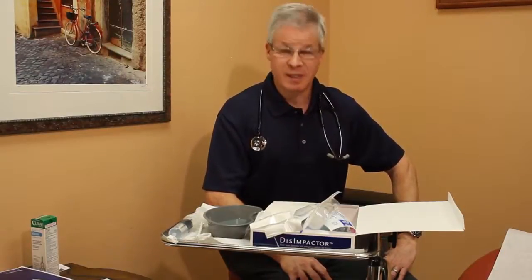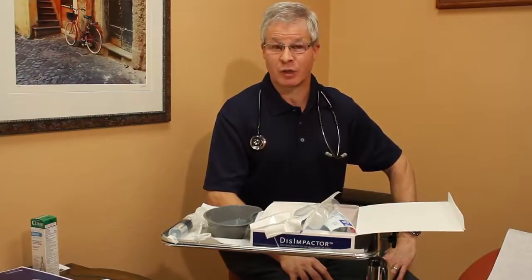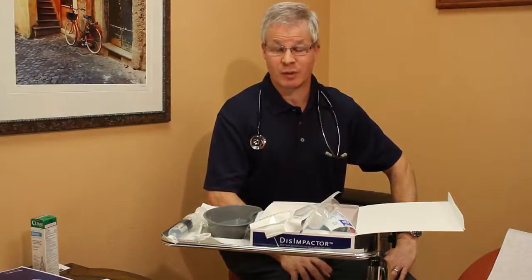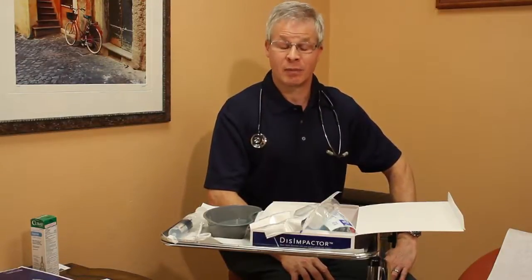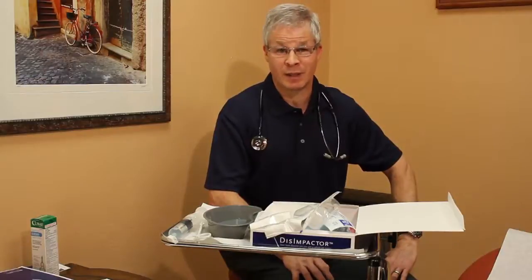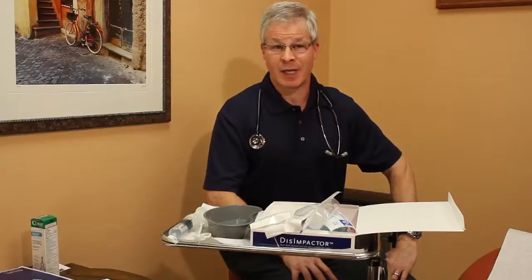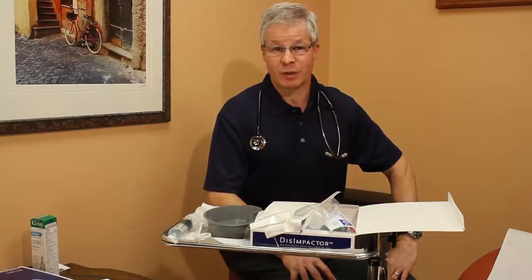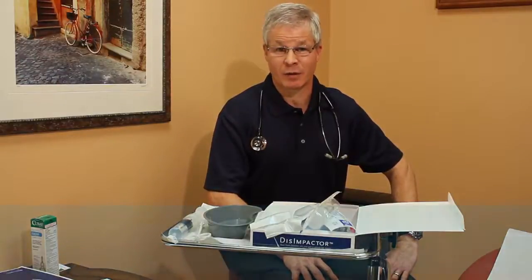So let's briefly summarize where we're at and conclude this video by saying that the DisImpactor is available as a new clinical tool to assist your patients with fecal impaction. Very important to make sure that you're familiar with the instructions for use before proceeding with using the device. It's important to follow the inclusion and exclusion criteria after confirming that the patient does have a fecal impaction on your digital exam. And then realize that when you're using the device, it's a combination of fragmenting the stool, creating a cavity within it, removing some of the stool, and then getting that enema in there deeply so that the enema has a chance to really work and dissolve the impaction.